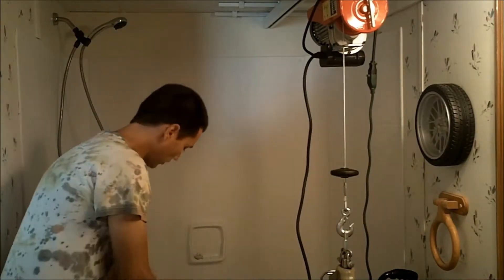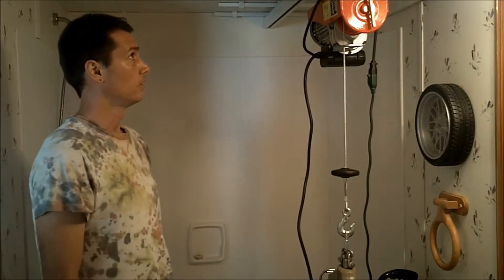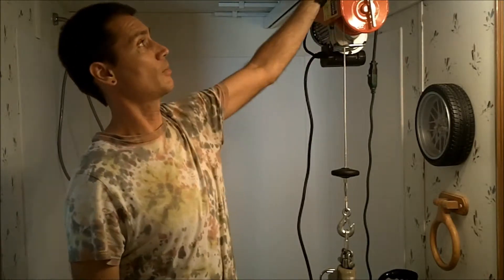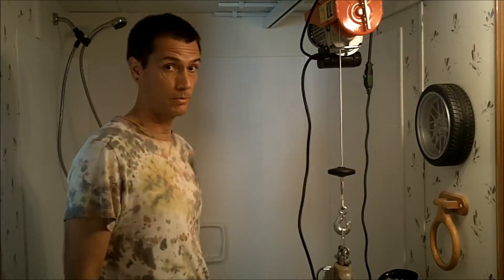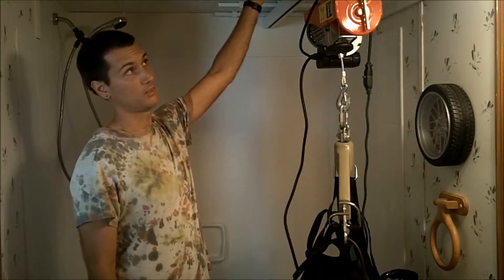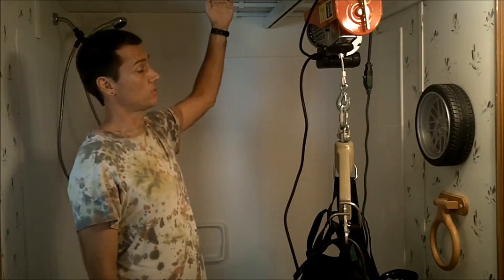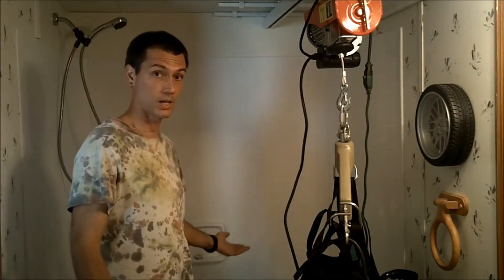You have to be a little careful — you may need to lift the legs depending on how long they dangle. You might want a full body sling; I've got one in the process of being ordered as this one's a little too small for him. I put a bolt and nut through the end to stop the rail so it can't come off, but if I want to remove it I can take the bolt out and it slides right out. Also watch for any possible fatigue where you have your braces in the ceiling — these are all attached into the posts, but watch for any sag over time and address it when needed. We've used it several times and it works very, very well.